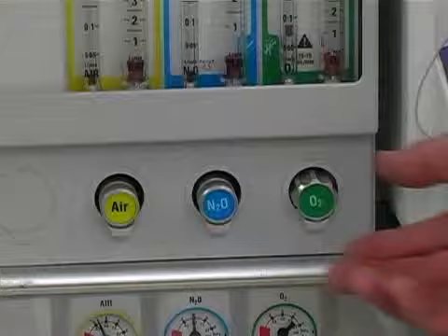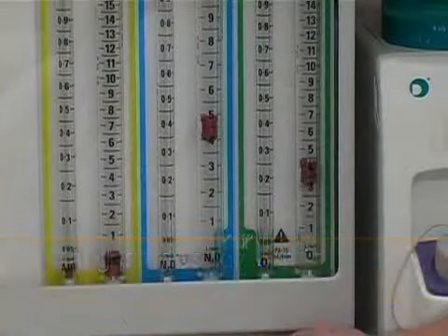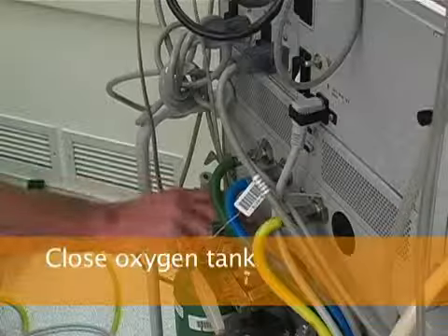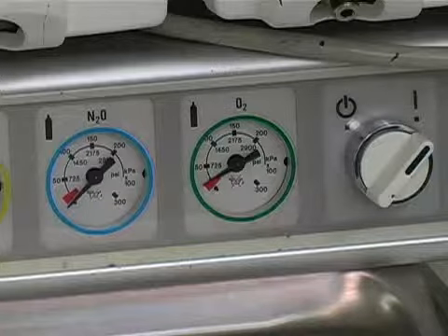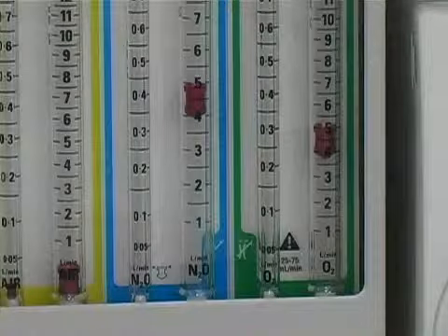Next, the fail-safe valve is tested by dialing nitrous oxide and oxygen gas flows to approximately 5 liters per minute. You need a nitrous oxide supply from either the central pipeline or a tank. Then the oxygen tank is closed. As the oxygen pressure falls, you should observe that nitrous oxide flow turns off before losing all oxygen flow.